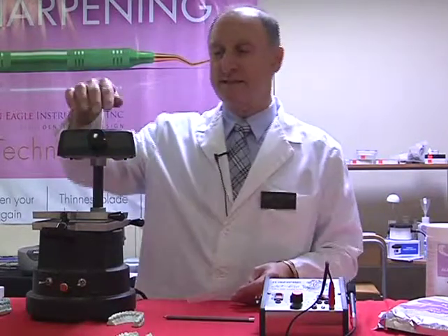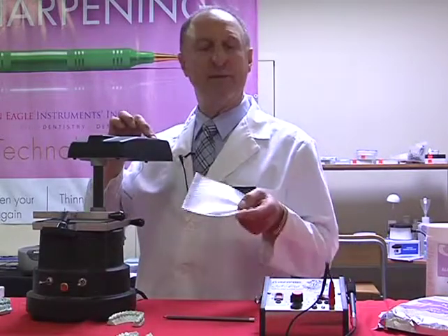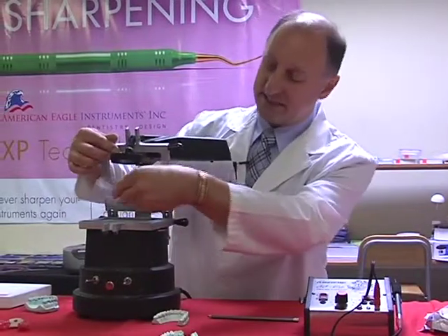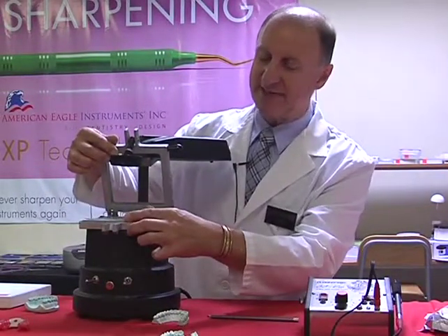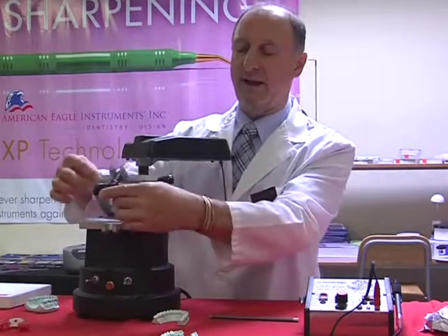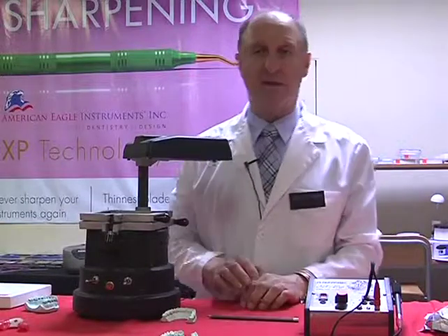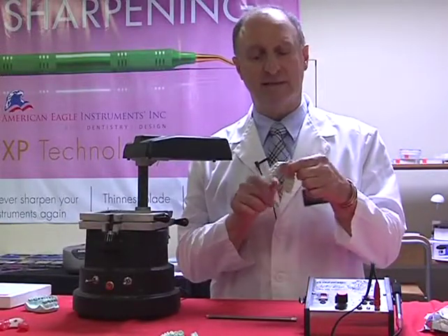So let's open up the machine and apply a sheet of the material, and this is how we would actually load the material into the system. So as this lifts up, I would apply this in easily and simply so it centers into the area. I then lock that into place. Now, very important, my model itself. You'll notice in this case I've removed the palate.